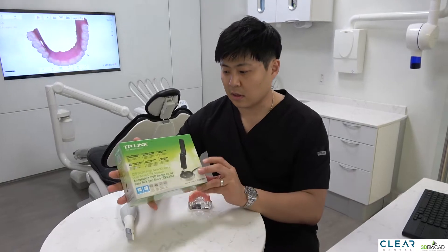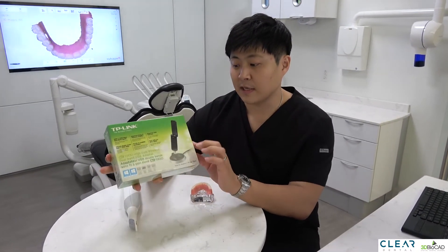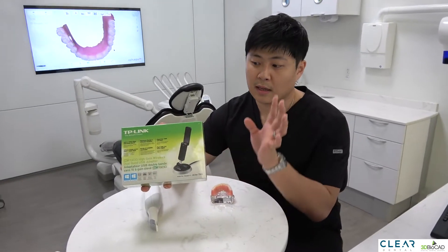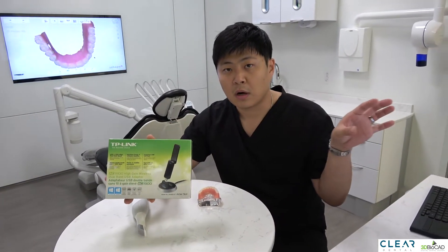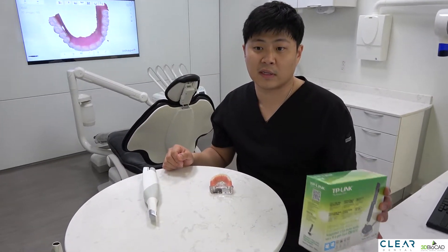On Amazon it's about $55, which isn't too bad. Basically what you do is you connect one of these adapters to each computer, and then you can disconnect from one computer and connect to another computer very easily.